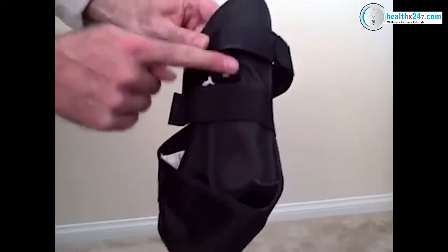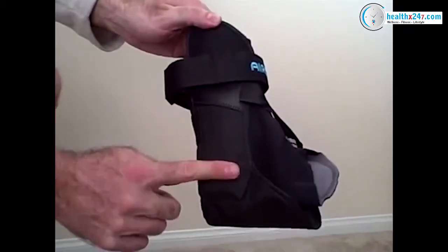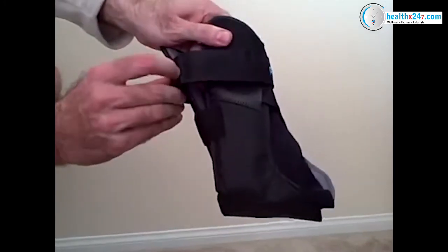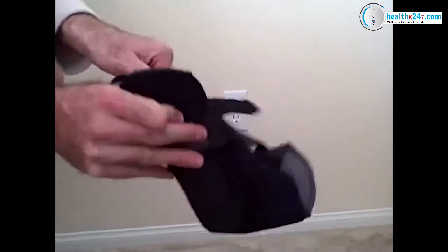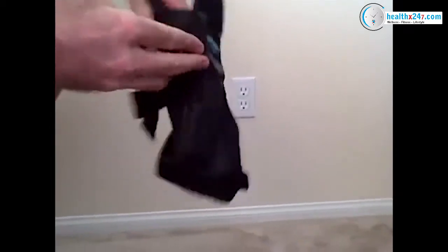It has two semi-rigid stirrups built on AirCast technology which provides semi-rigid support. It's very easy to put on and fits inside any shoe. It comes in three different sizes and effectively takes care of symptoms caused by posterior tibial tendon dysfunction.